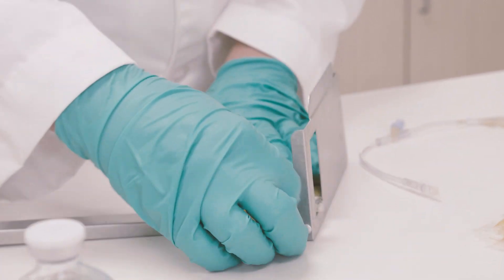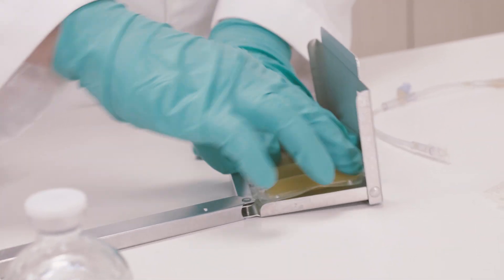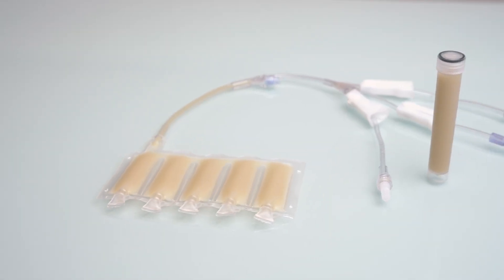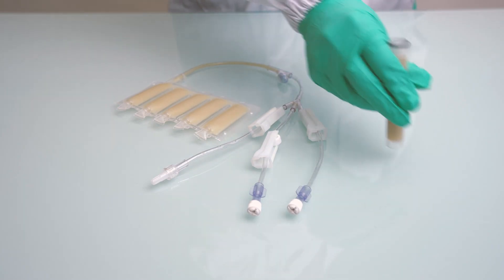FlexBags fit into the same cassette as a CryoStore CS50 bag, allowing for cold storage next to the final product and eliminating the need for cryo vials and cold vial storage.